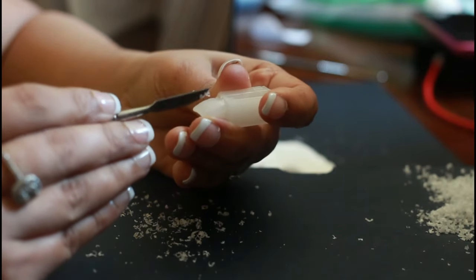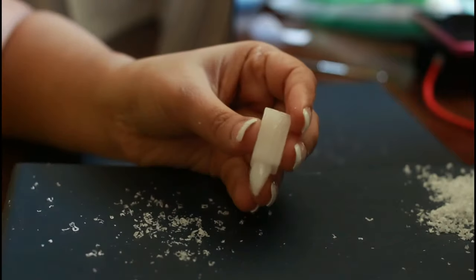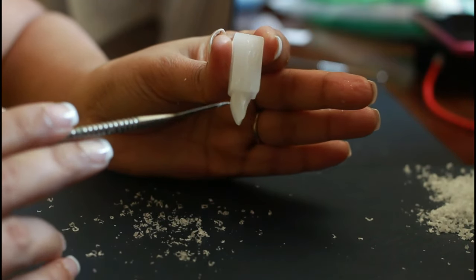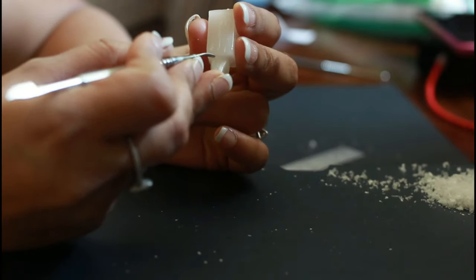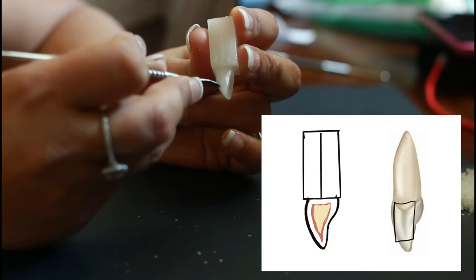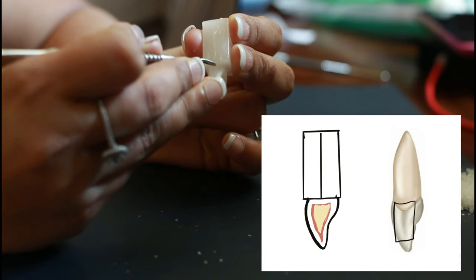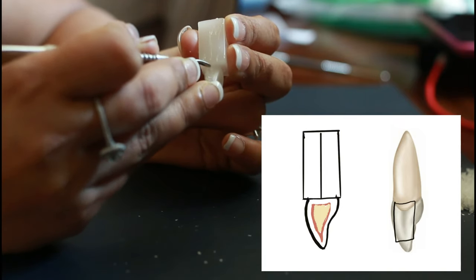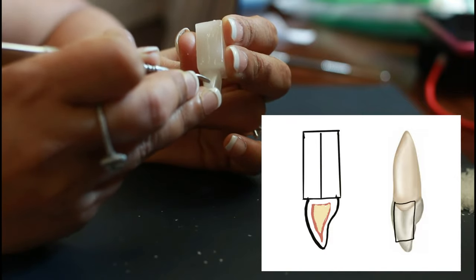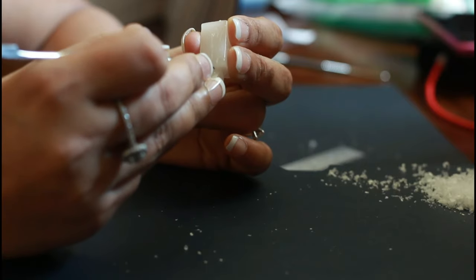Keep curving in from the proximal surface to the center of the labial surface. Slightly shave the labial surface and then polish it up. Now moving on to a very interesting part — let's enhance the proximal surfaces. To do this, deepen a triangle within the triangular shape of the proximal surface: mark a smaller triangle extending to the incisal edge and then carve it out from the center.